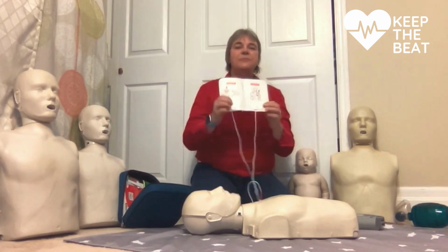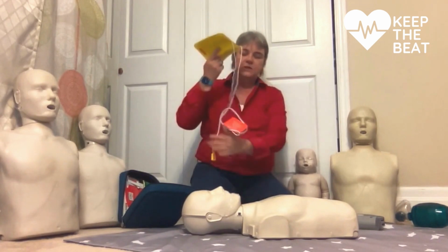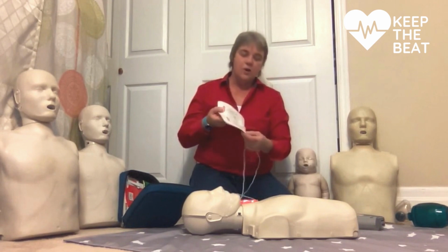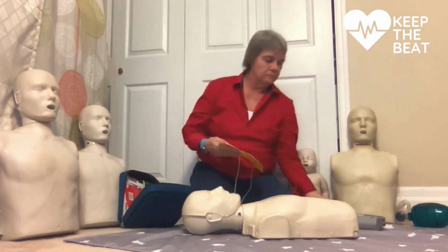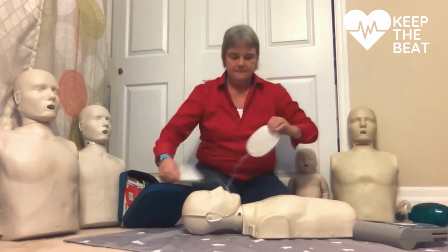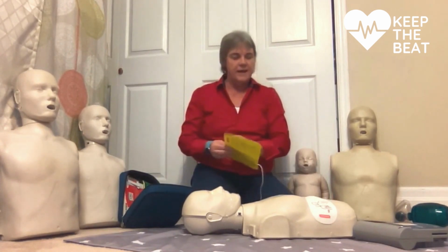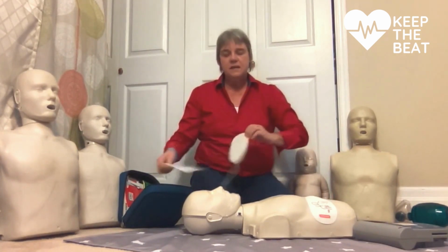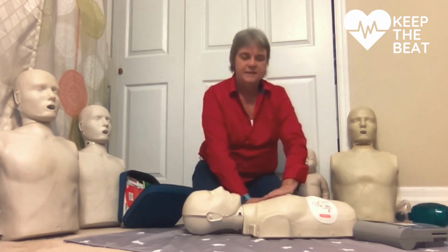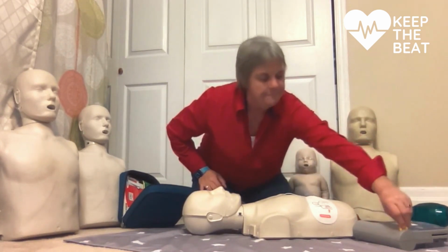My pads have pictures, and it comes with directions. What you want to do first is turn your AED on, and then follow the prompts. Apply pads to patient's bare chest. So I apply the pads. Plug in pads connector next to flashing light. I want to make sure they're tight and firm fitting, and I also want to make sure I don't cover anything up with these pads. It says now to plug it in.